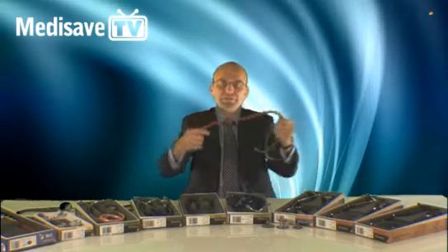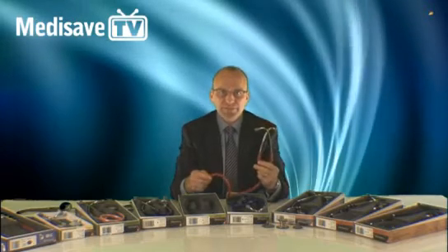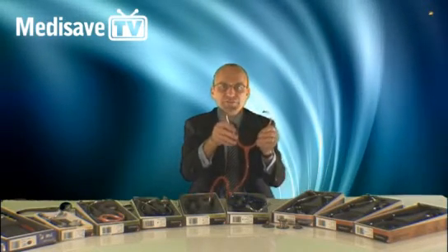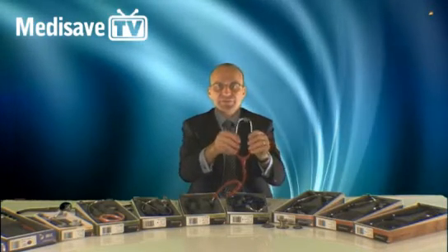Binaurals in both cases consist of a soft and flexible PVC tube with no latex, an adjustable headset and earpieces. The headset contains leaf springs to enable the user to adjust the tension, for a comfortable and efficient experience.